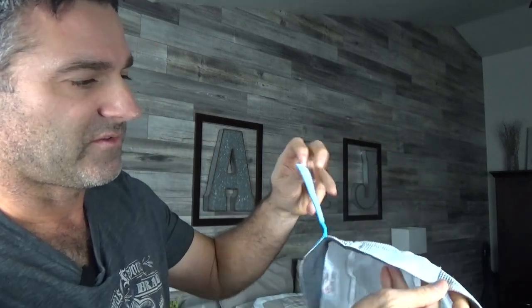Let's show you how to fit this thing. First, you have to get a measurement of the circumference of your head because it really does matter what size you have. Just measure the circumference of your head and you'll be able to figure out what size you need. On the back of this, we have one strap for fine-tune adjustment. The crease just needs to fit right here — it's going to create a snugness so the strap won't pull up and come around your head, which would get the chin strap out of position. Once you have that size figured out, you take the non-elastic strap and pull it to the last point you want it open. This provides almost like a gentle reminder to not allow the jaw to drop to that point. You can experiment to find the best position, but I found that my jaw can move a little for talking, but if I try to relax it, it's not going to fall any farther. Perfect.